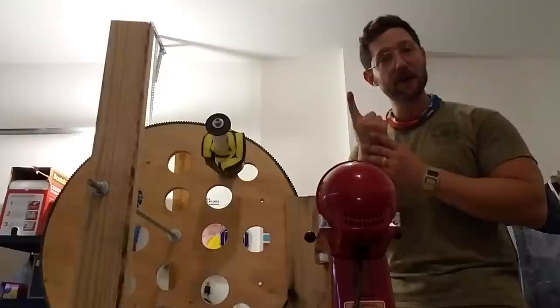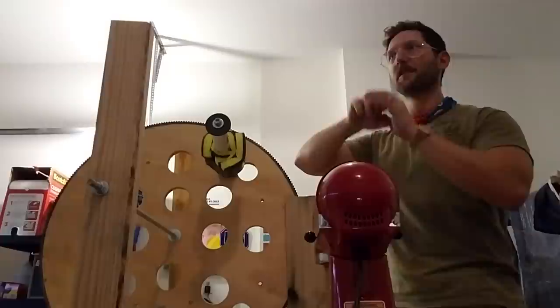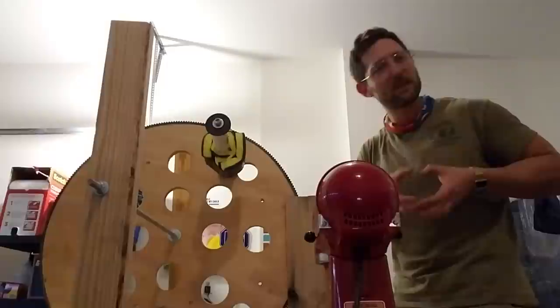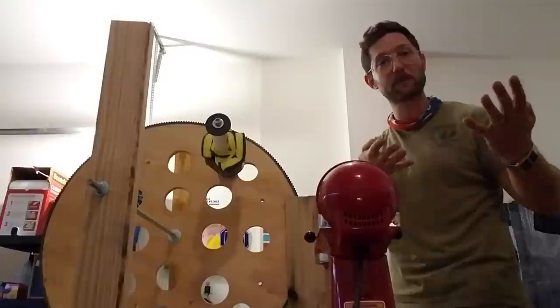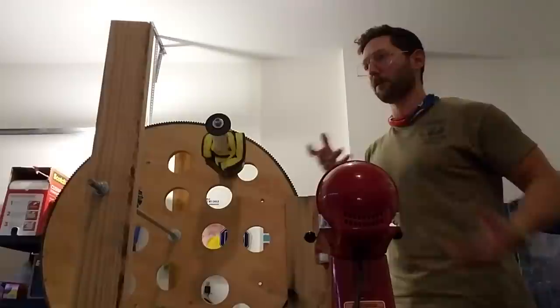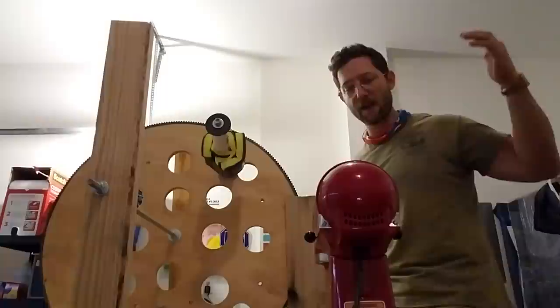What is hard is the tidal volume and the respiratory rate — how do you automate those? How do I give someone the same volume of air every single time and then go do something else? If I'm sitting there with the bag I can kind of do the same thing every time, but the rate might be off. How do I give the same volume of air at the same interval every time, so I can make adjustments without being there to do it myself? Well, this does that.